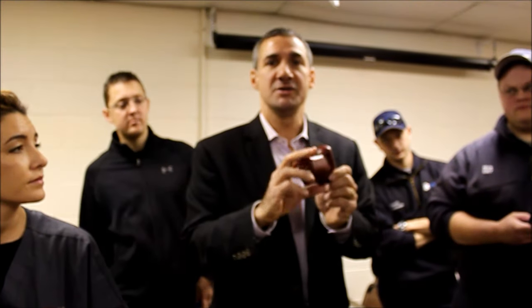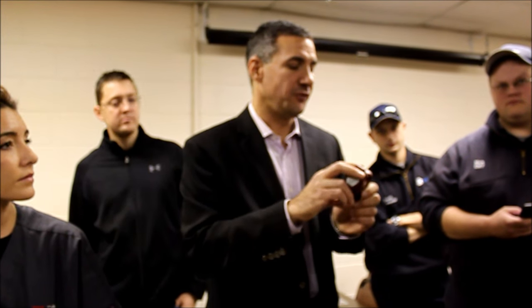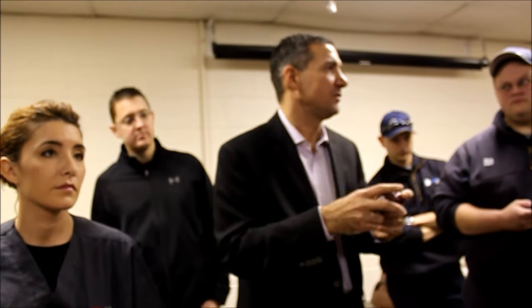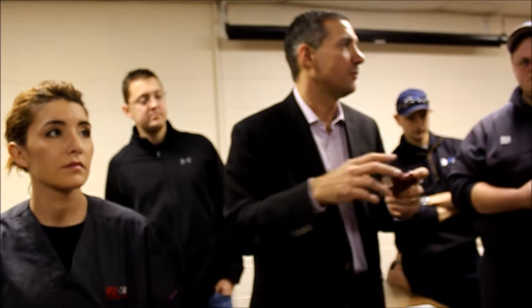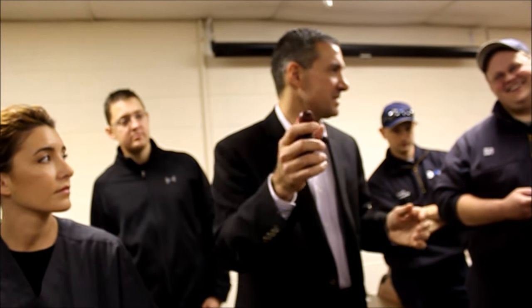...percent of your battery life left. These are generally rated for about 500 insertions. So if you see the red light, you've got about 10% of your battery life — you've probably got about 50 insertions left. So you still can use it, but you just have to get your drivers. If you're playing around with these in your rigs and practicing, each of these — that's an insertion.